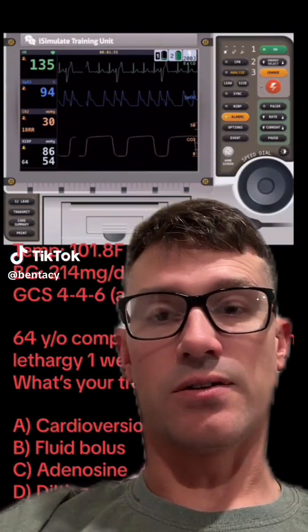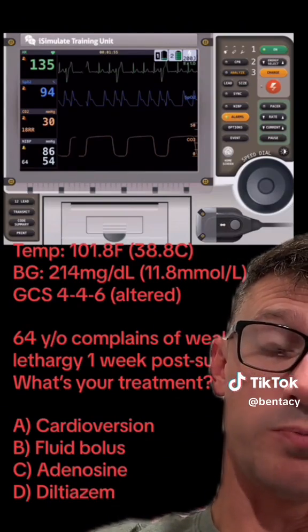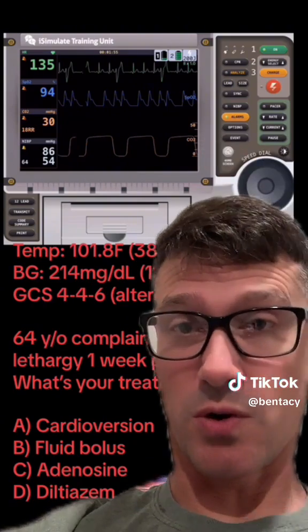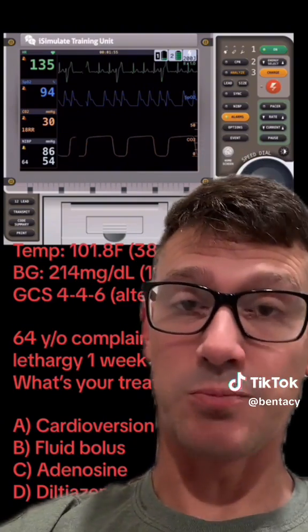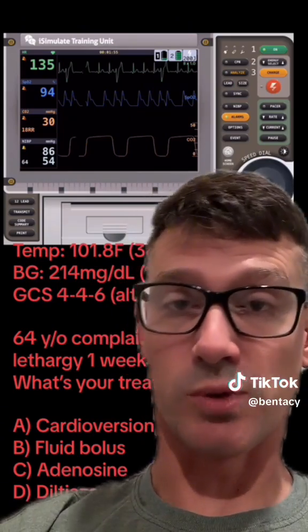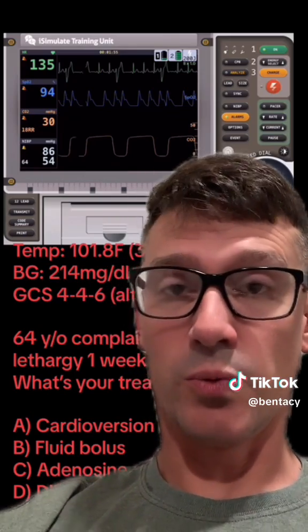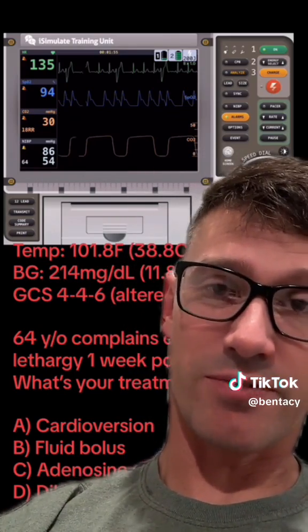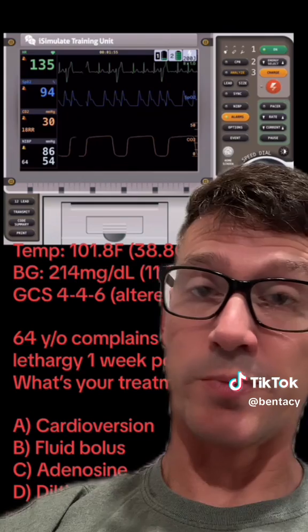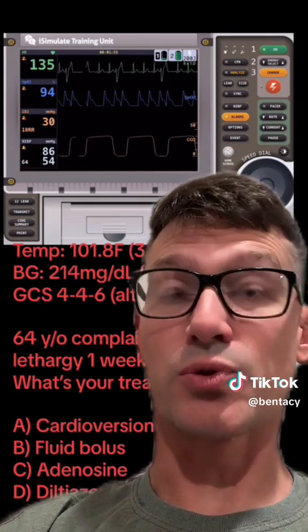Let's break this down. You were asked what your treatment would be for all of this information. Heart rate in the 130s as pictured, but in the video the heart rate was as high as 160. It's a sinus rhythm with some semi-frequent PVCs, SpO2 94% on room air, EtCO2 of 30, respiratory rate of 18.